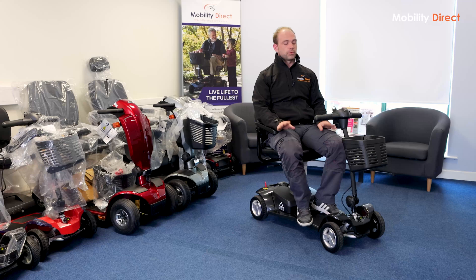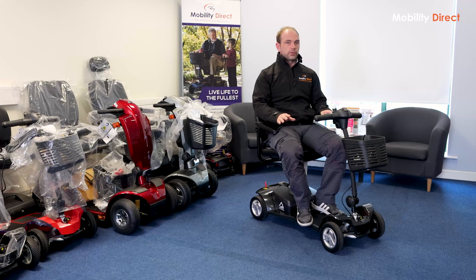When it comes to negatives, there aren't really too many to mention — it's a really, really good scooter. Price-wise, it is a lot more expensive than the older Apex Light, the lead-acid version. But it's also a lot, lot lighter. So if weight is a huge factor for you, then I would strongly recommend considering this one.